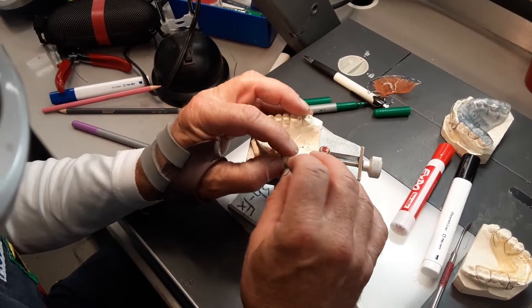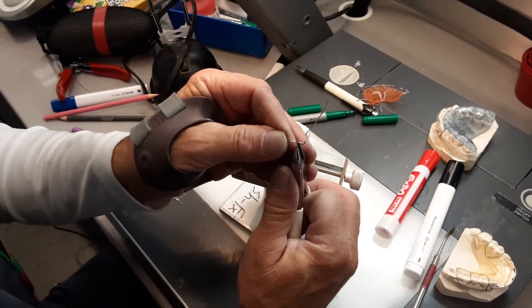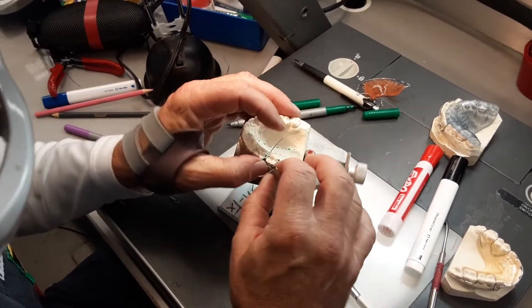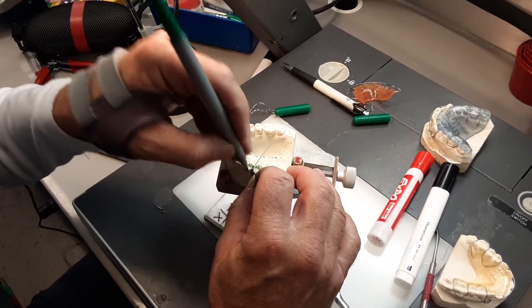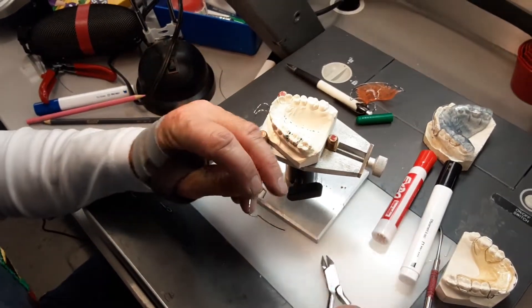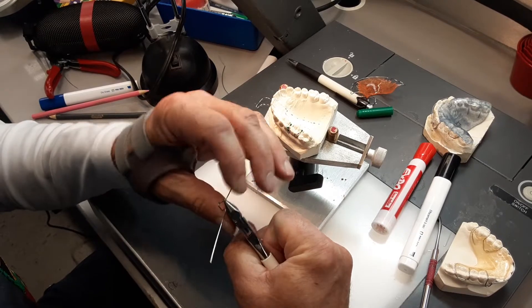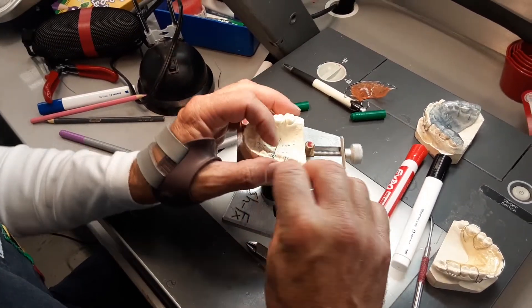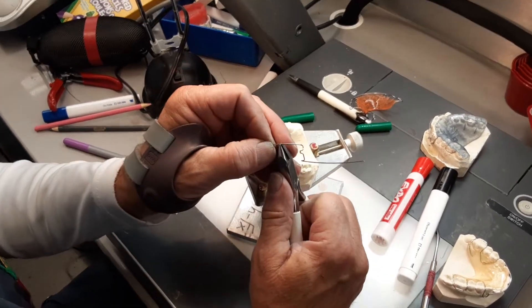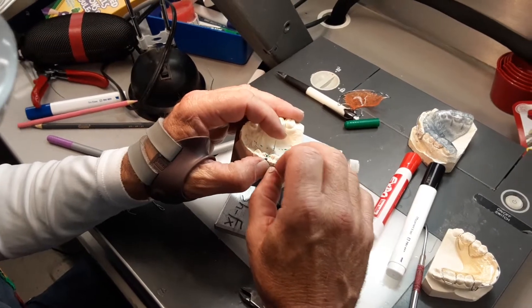I'm going to put the eyelets into the preparations and I've bent just a tiny bit too much, so I'm going to bring it back just a touch — I want to keep it in that embrasure. Put my eyelets into the preparation, now mark where it's coming out of the lingual embrasure, mark just past where it leaves contact with the teeth on the lingual embrasure, and I'm going to bend it down. Put it back on the model and it's hitting the model over here, so I'm going to bend that wire out of the way — I don't want to cut it off until I'm absolutely sure that's excess wire.